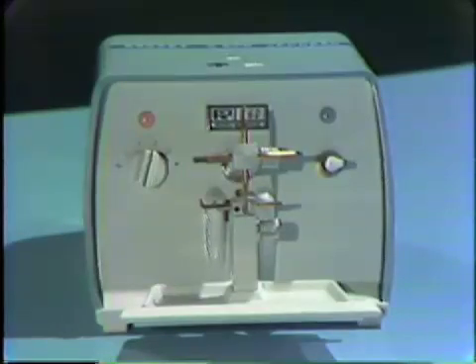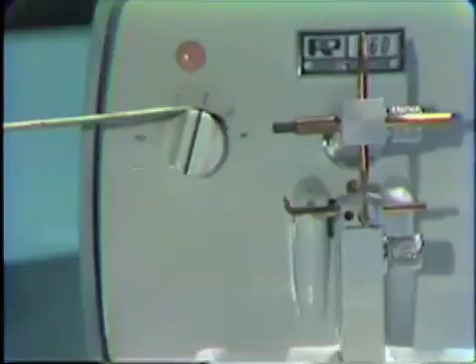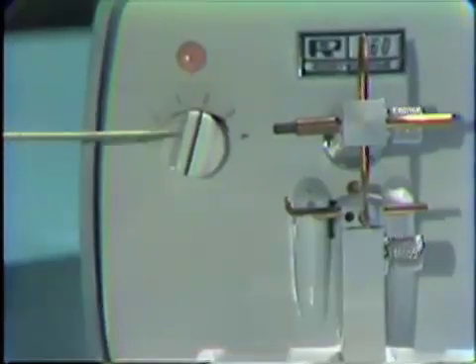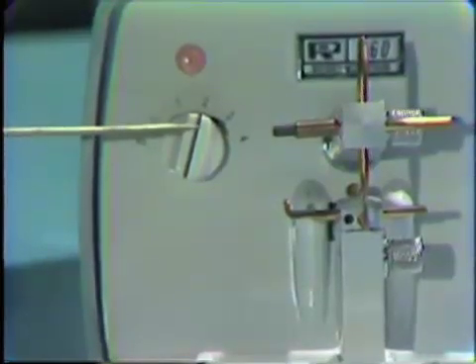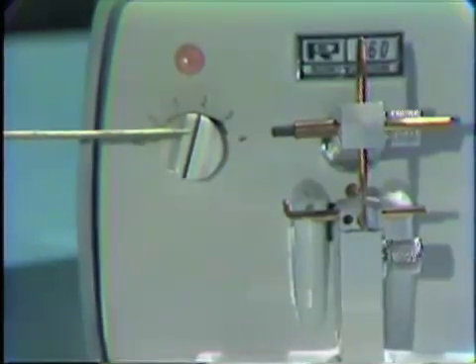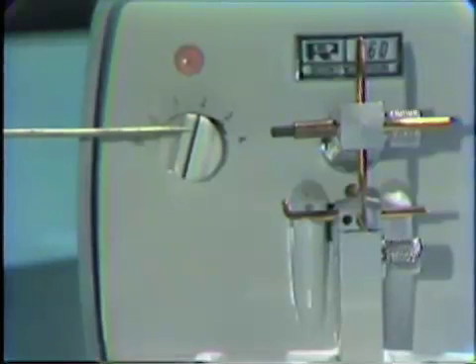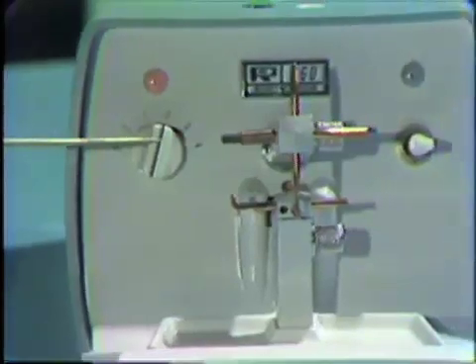In our clinic, we have available two spot welders. This is one of them — it's a Rocky Mountain spot welder. There are basically two settings. The first setting adjusts the intensity of the weld. Every machine is different, and this machine happens to use the number 2 setting. The goal in making the weld is to have the weld strong enough to hold the band material together, and yet not so tight that when we go to remove the band, we cannot break the weld apart. So on this weld, we will use the number 2 setting.